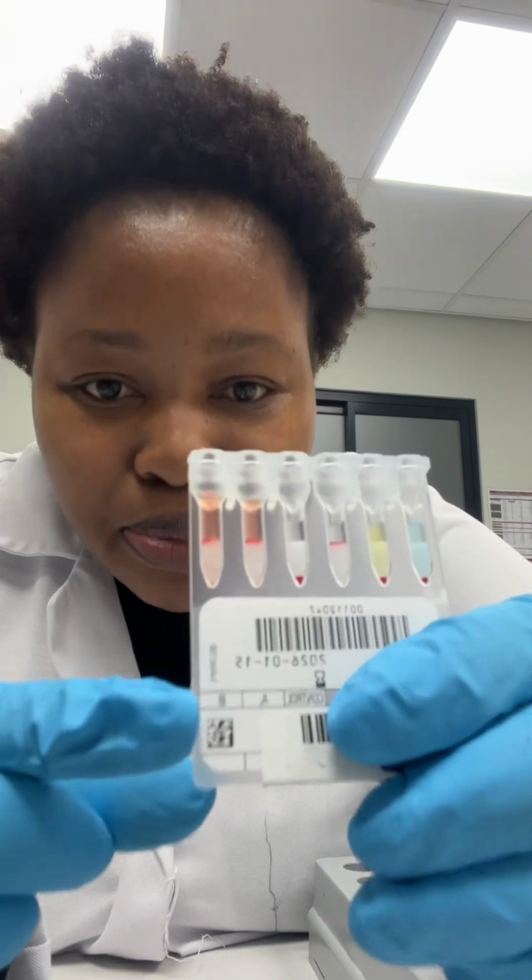Our control results, I'd say they are predictable, or rather, they are always the same. We always know what the control results should be. That's why we call it a control. A control should always be negative. Once it's positive, then there's something wrong. You need to do further testing to determine where you went wrong or restart your testing. In this case, the control is negative, and that we know, meaning that we're on the right track. And then on the reverse side, we have A1 cells and B cells.